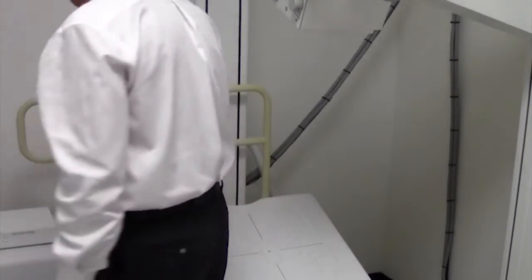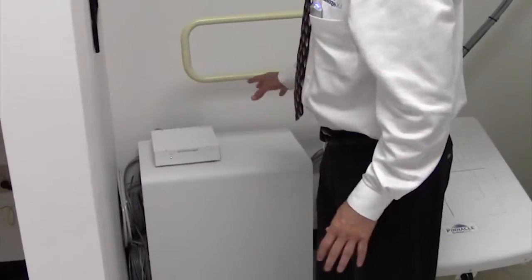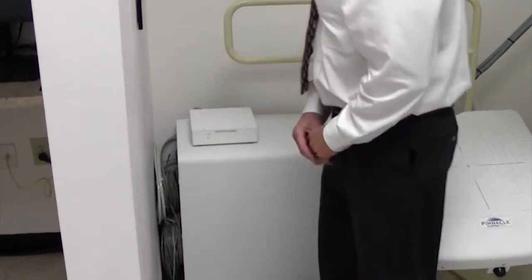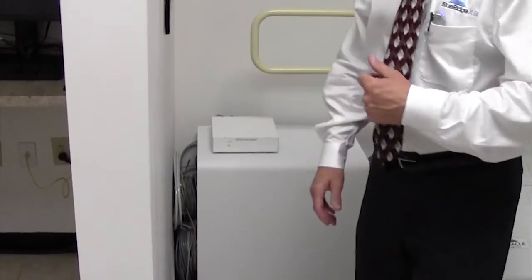The generator can be put anywhere located in the room and the power supply for the detector is located there as well.